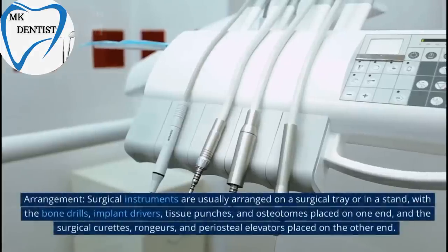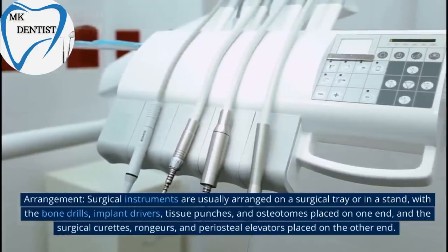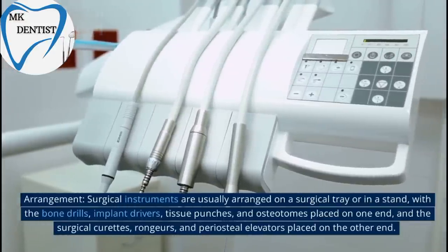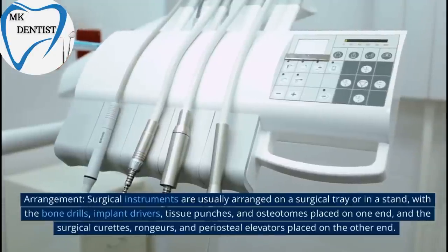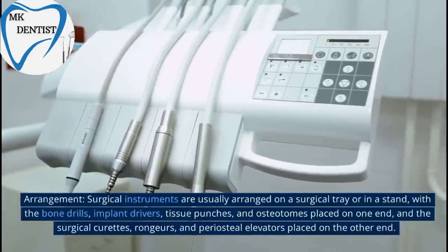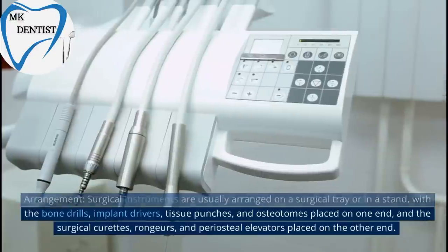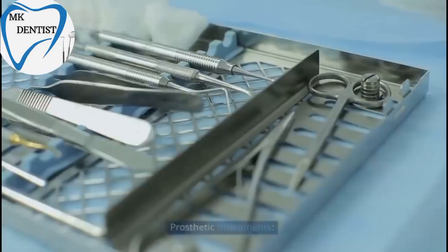Arrangement. Surgical Instruments are usually arranged on a surgical tray or in a stand, with the bone drills, implant drivers, tissue punches, and osteotomes placed on one end, and the surgical curettes, rongers, and periosteal elevators placed on the other end.